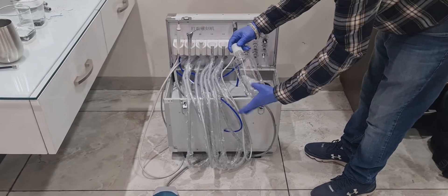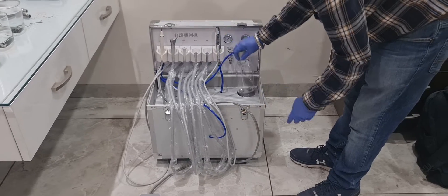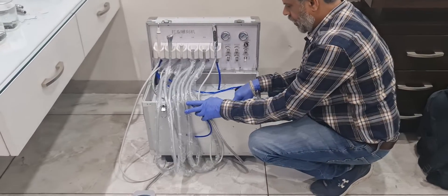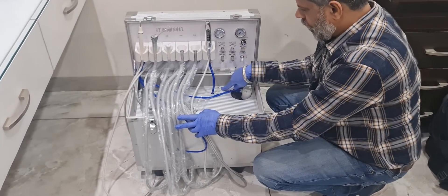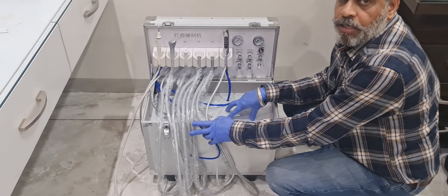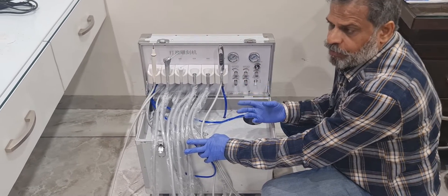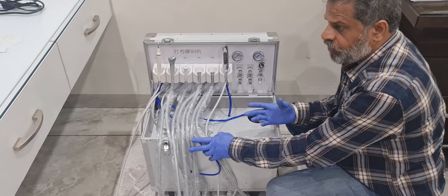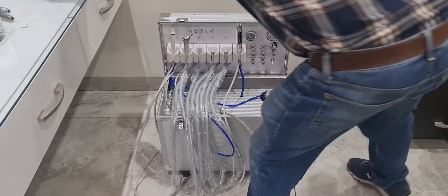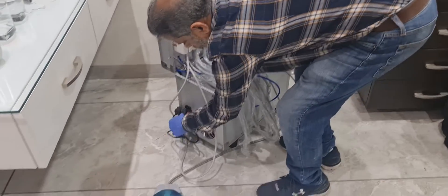Fill this with water. The most important point is there are four screws on this base. Unpack this and remove the packing from the inside, because the packing is made of foam and it is very compact to take out. Now I'll show you the working.